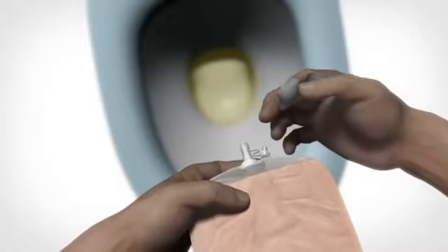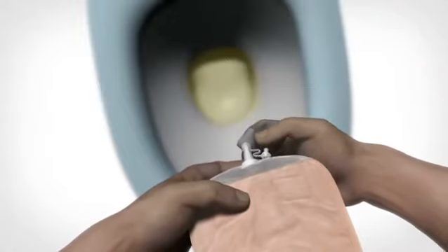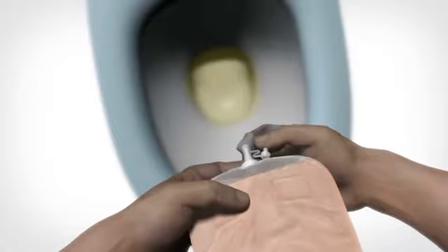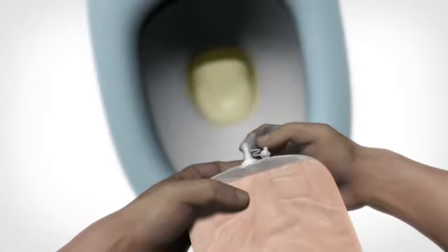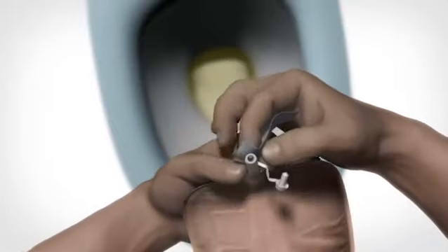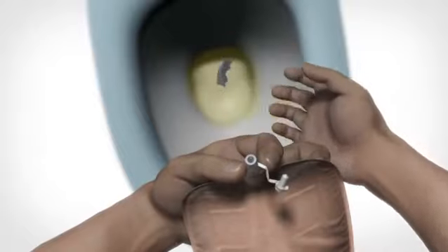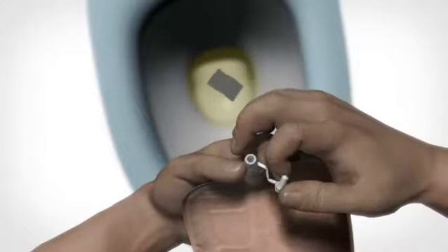Before closing the outlet tube, dry the end of the tube with a piece of folded toilet paper. Keep holding the toilet paper around the outlet tube while turning the outlet upwards. Then dispose of the toilet paper.